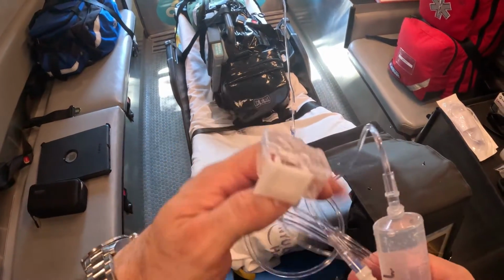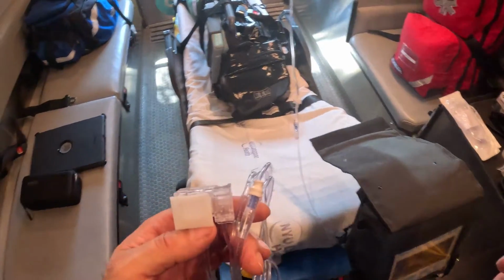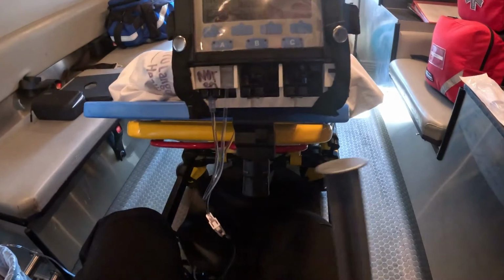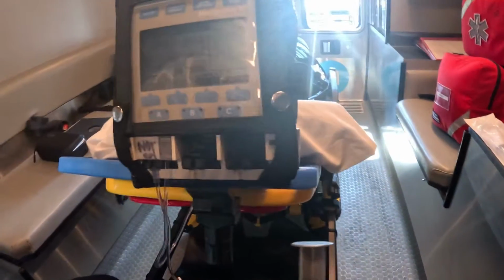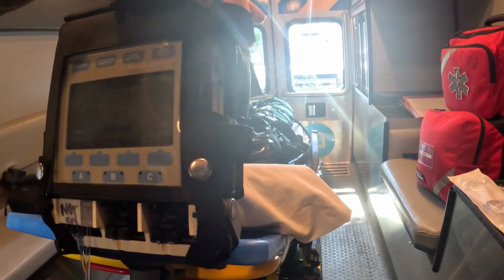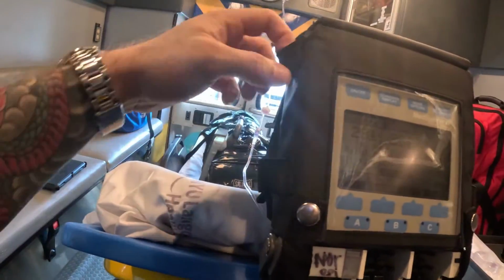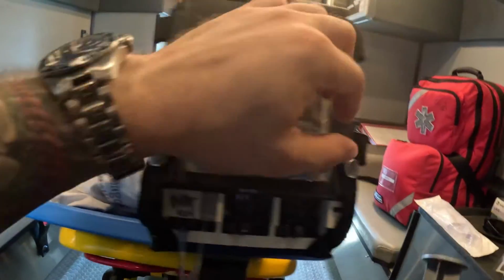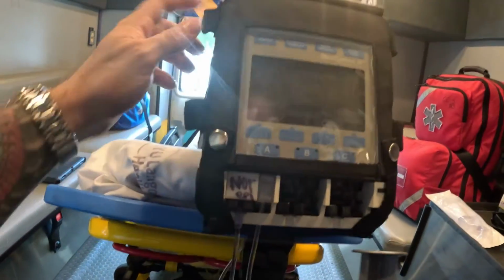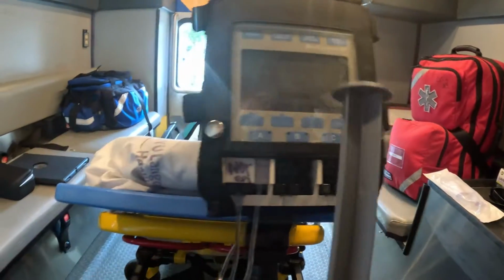So now we already set up our pump. This is my no-epi. And I'll show you what I'm gonna do next. So on this pump, on the sides, you see, this housing is for your 60cc syringe. So on both sides, you could basically put your 60cc syringe. So I'm gonna put it on this side, just so you guys can see. So this side is unobstructed.